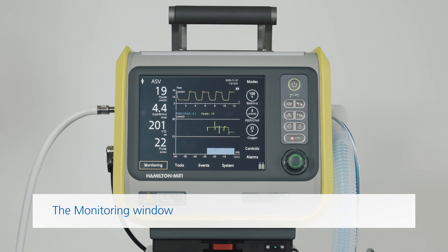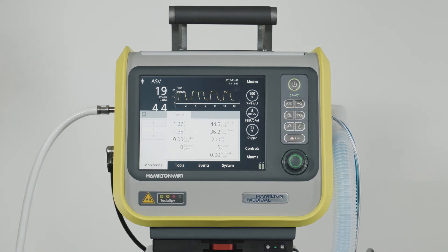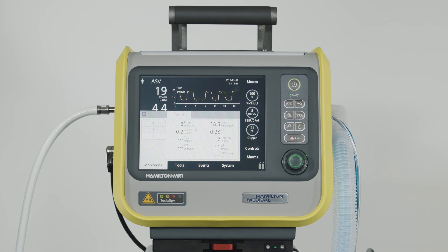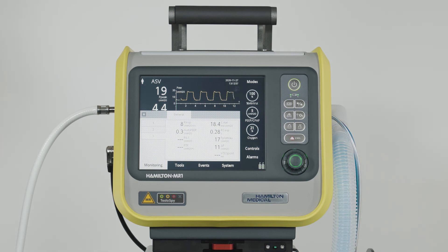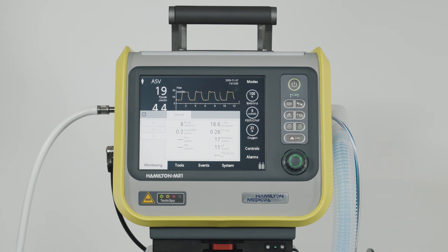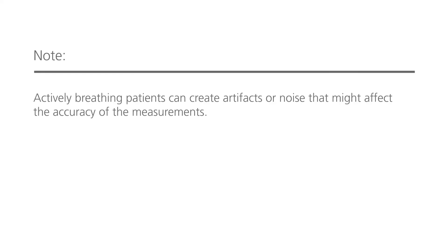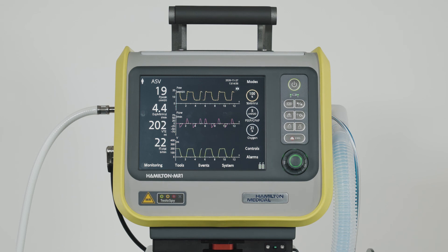To access all the monitoring parameters, touch the Monitoring window. To access different windows, touch 1, 2, and 3. Each window displays a different set of parameters. The Hamilton MR1 automatically measures resistance, compliance, and auto-PEEP using a statistical technique called the Least Squares Fitting, or LSF method. This method can be used in all modes without interrupting ventilation, because it doesn't require special inspiratory flow patterns or occlusion maneuvers. The LSF method works well if the patient is partly or fully relaxed. Now you know which monitored patient parameters are available on your ventilator and how to access them.